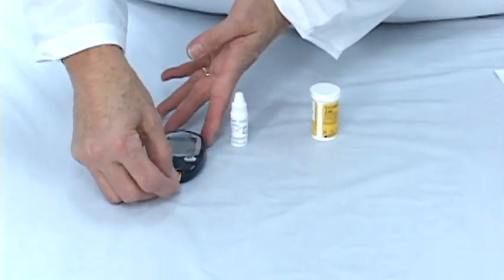You perform a glucose control test the same way you do as a blood sugar meter test. So you put a strip into the meter, you shake your vial, put a drop on the tip of the vial, and then you use the solution in place of your blood.